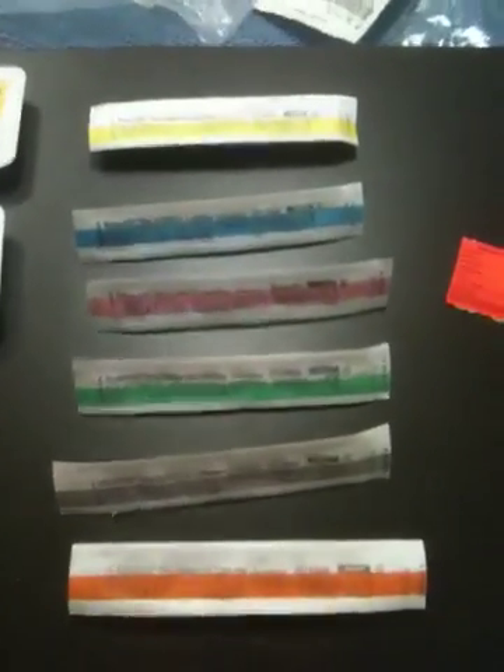It's getting to be IV time, so I thought I'd make you familiar with a little bit of the equipment first. First and foremost, you've got the cannulas, and I just wanted to give you an idea of the different types of cannulas. These are the ones you're normally going to see in the facilities.